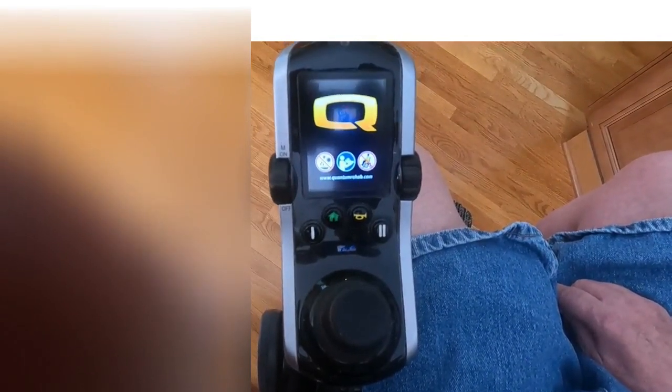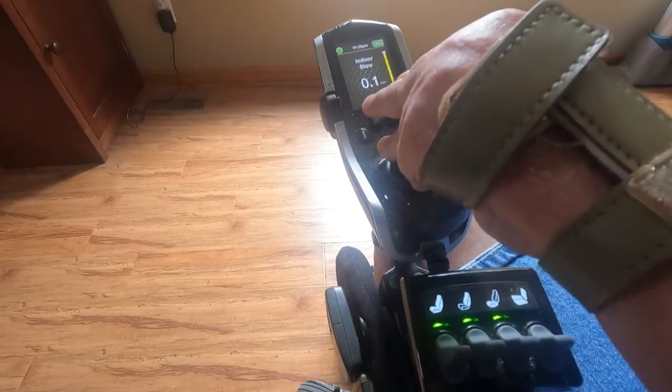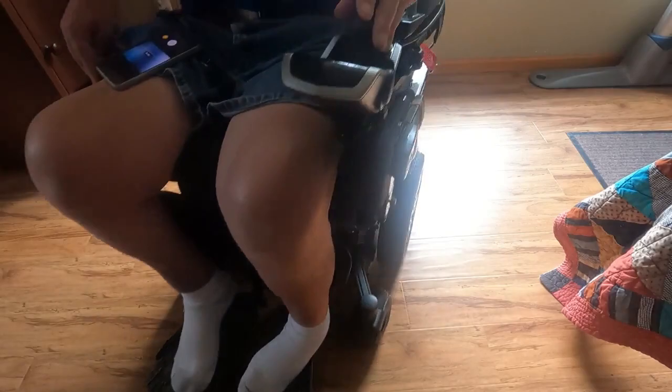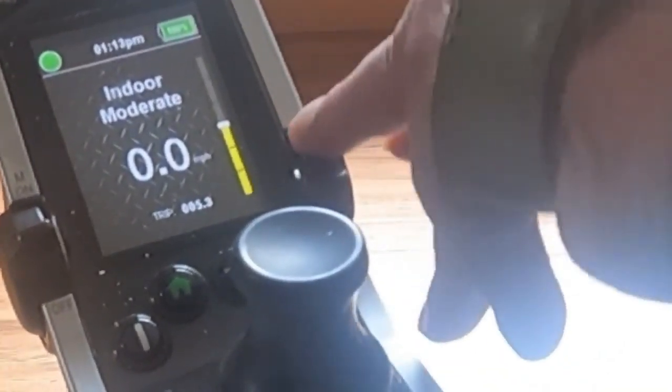To turn the power chair on or off, use the toggle on the left side of the controller. Pushing the toggle forward once will turn the power chair to the on position after it goes through a quick sequence of system checks. The unit's drive will now move if the joystick handle is moved out of the neutral position. By the way, the rotary dial on the right side of the joystick controller is a speed dial that can be adjusted to suit your fancy in any drive mode.